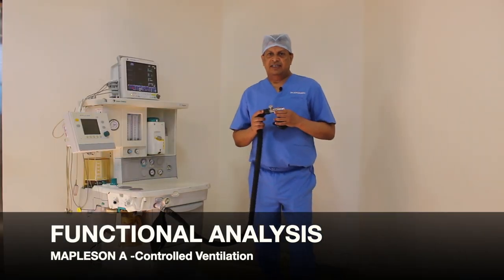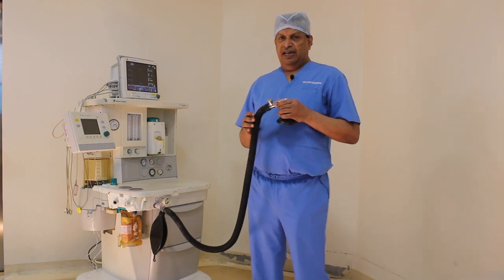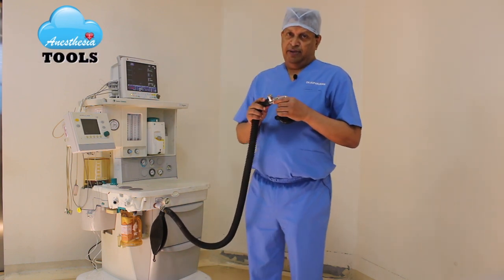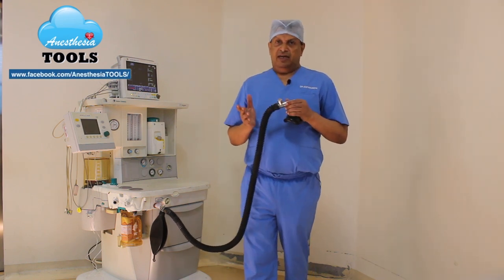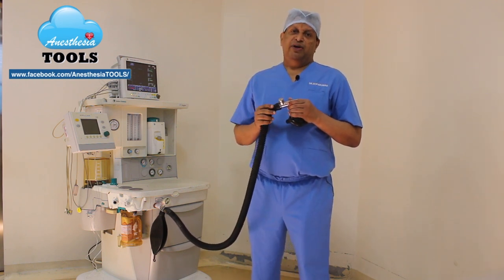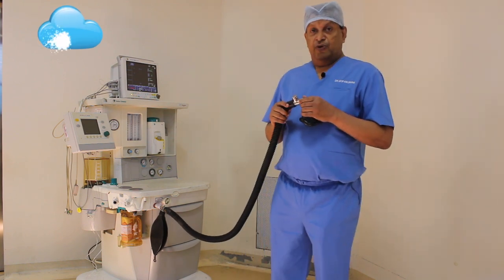Now we shall see how this ideal circuit for spontaneous ventilation behaves during controlled ventilation. For controlled ventilation, we adjust the APL valve so that when we squeeze the bag, the patient receives adequate tidal volume. The main difference between spontaneous and controlled ventilation is that the APL valve opens during the latter part of expiration in spontaneous ventilation, but it opens during inspiration when used for controlled ventilation.